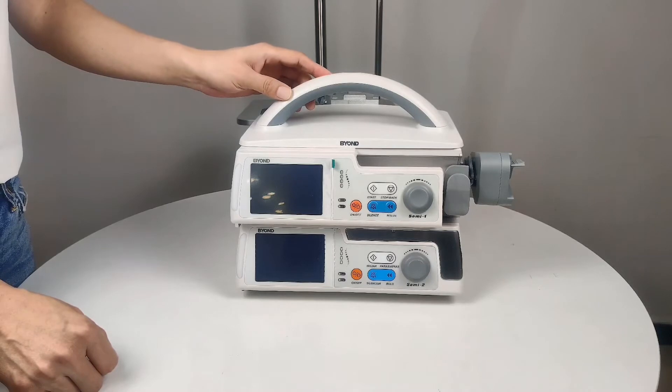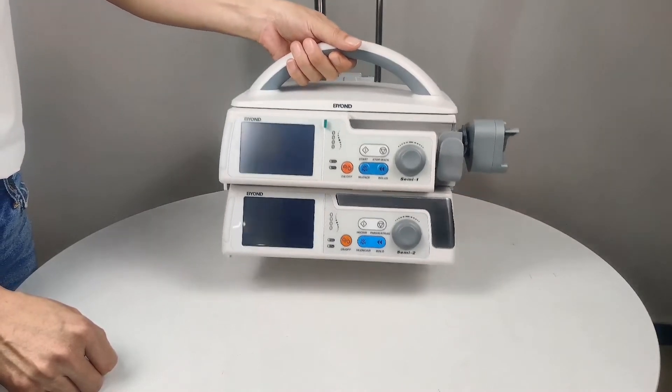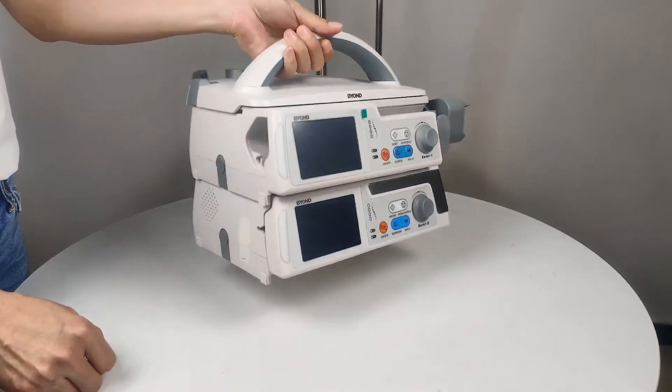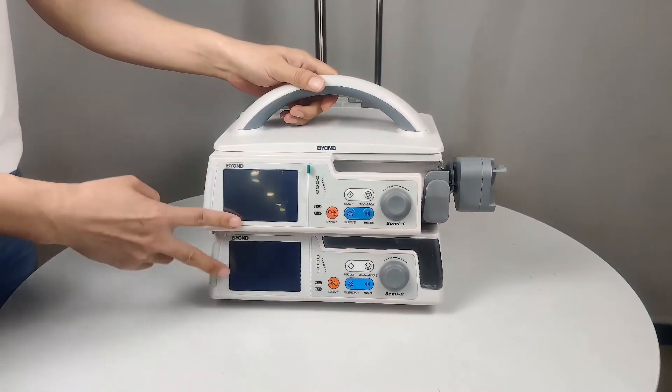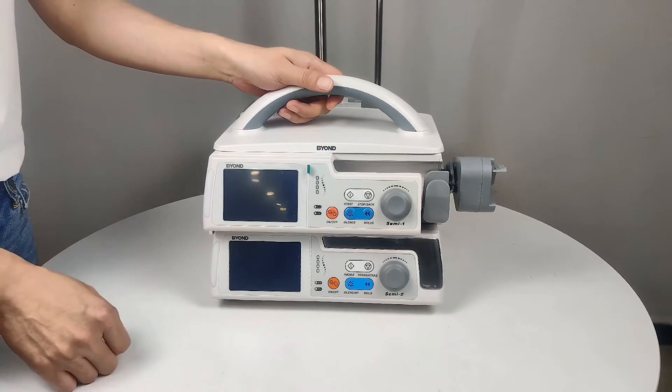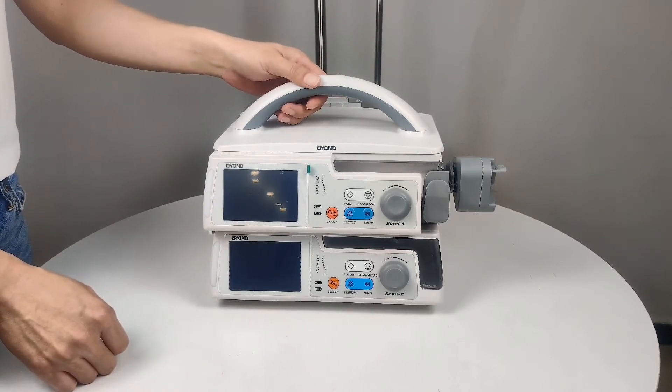We can carry the pump using this simple handle. Very easy. Our simple handle can carry one pump, two pumps, or three pumps. Maximum is three.